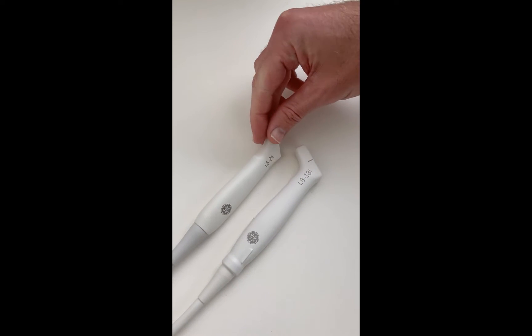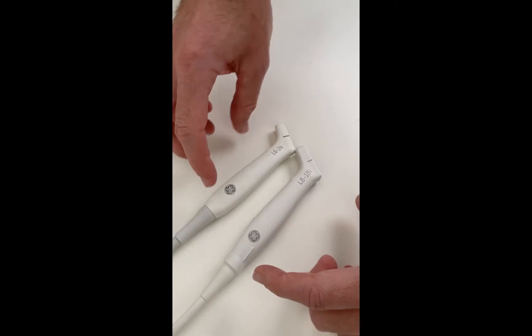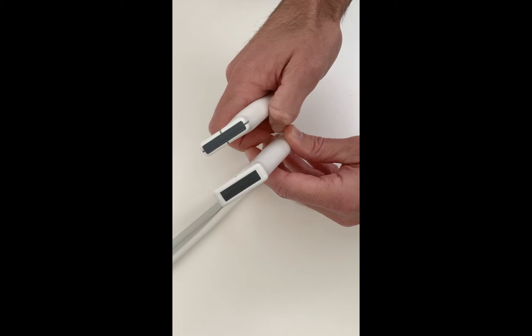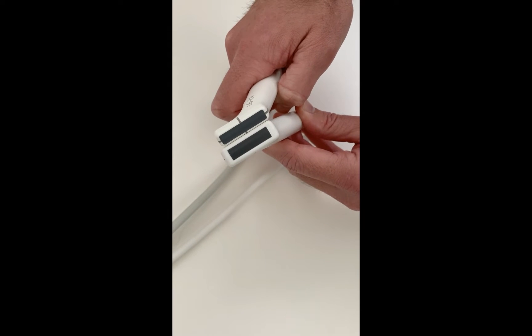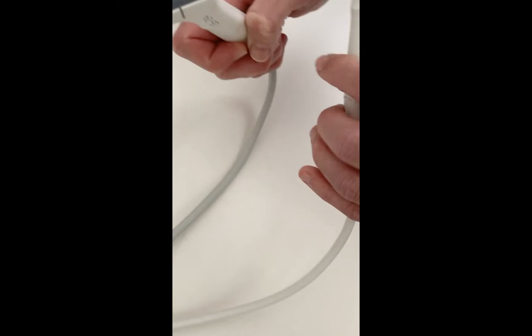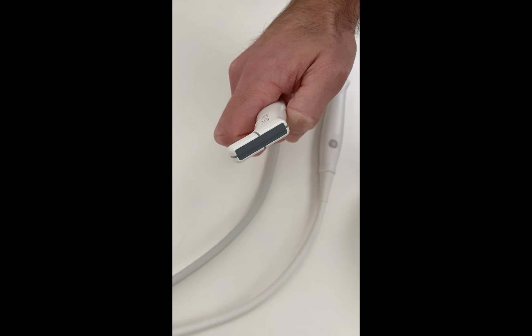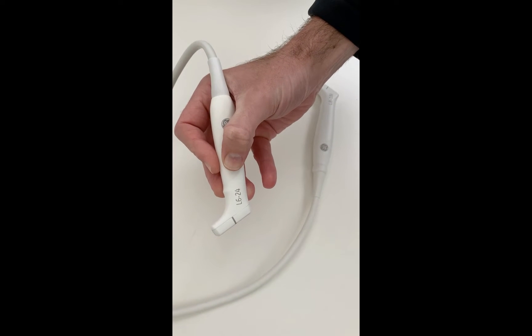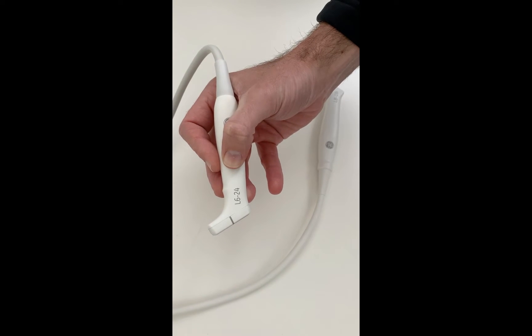We had a little play with the R&D of this. They've reduced the size of the footprint both in terms of the size of the probe and the face. You'll notice the difference — it's a much slimmer face, a slightly larger footprint, better use, and smaller housing around it. It's got nice little markers for your center and end range for needle interventional work. It fits pretty nicely in the hand, and finally GE has come to the market with a high frequency hockey stick.